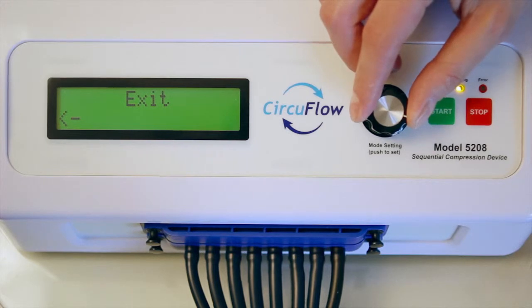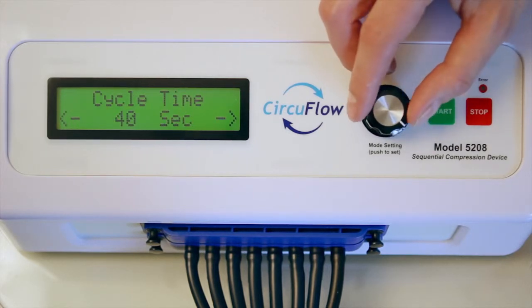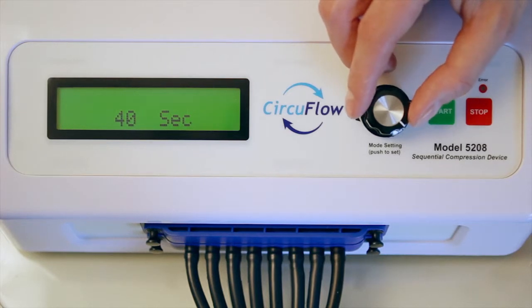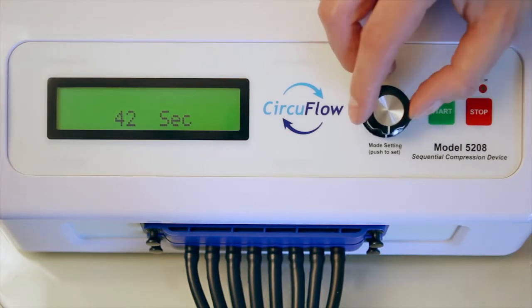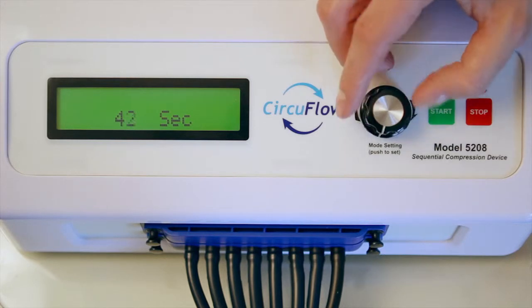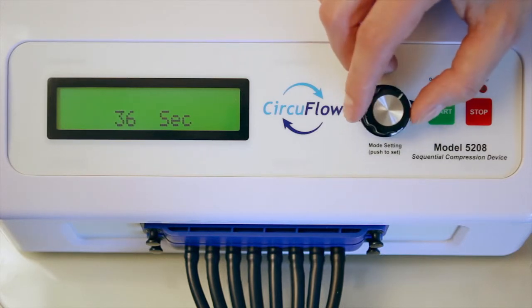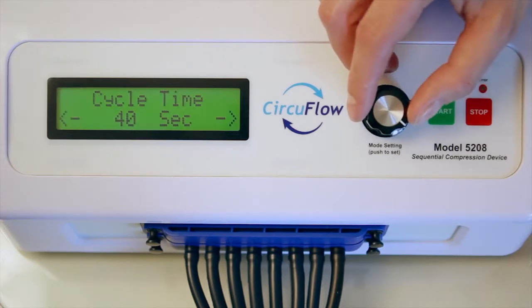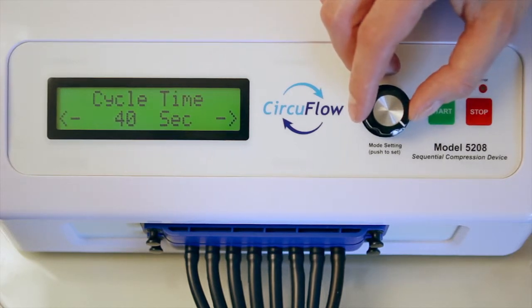Access the second parameter, cycle time, by turning the knob to the right and pushing to select. Increase the cycle time by turning the knob to the right. Decrease time by turning to the left. The cycle time can range from 20 to 240 seconds. Push the knob to confirm the new cycle time.